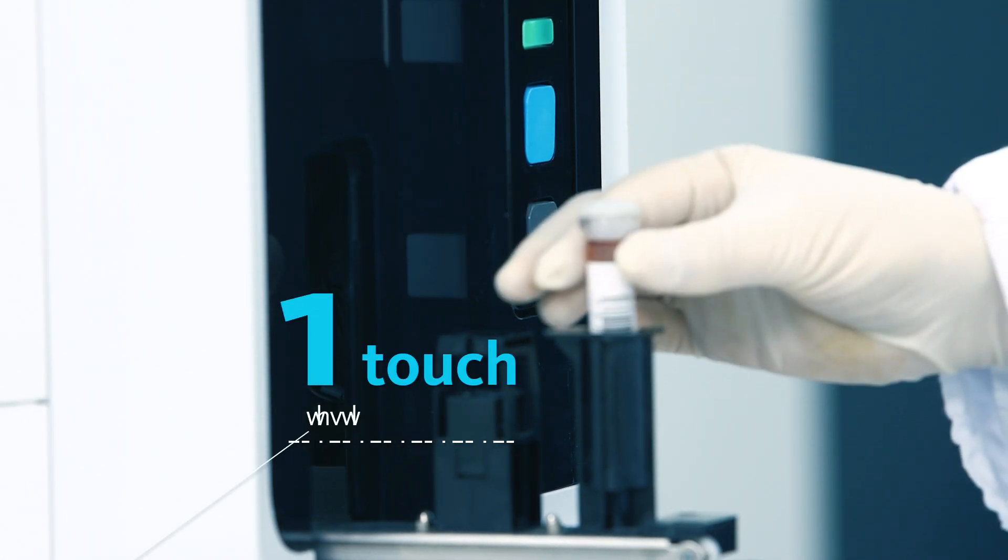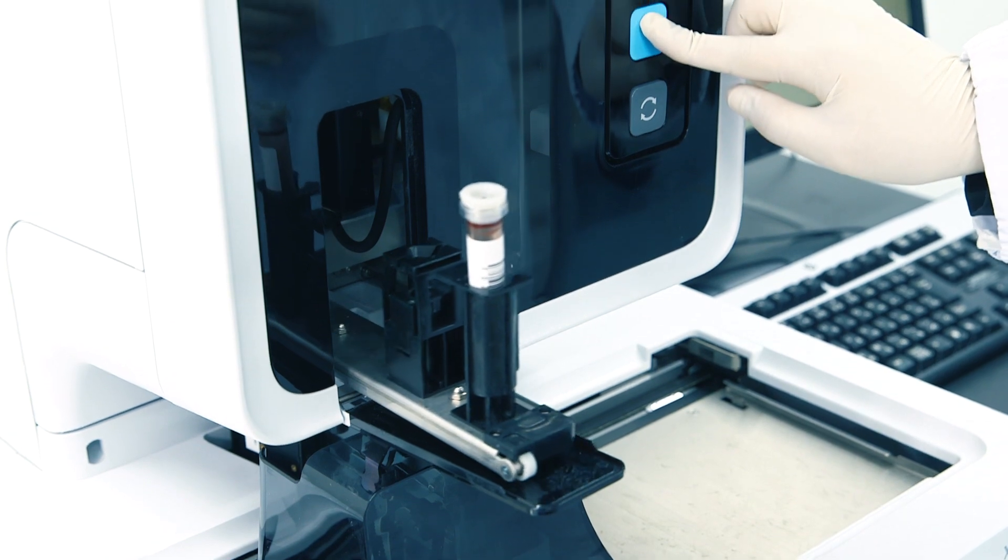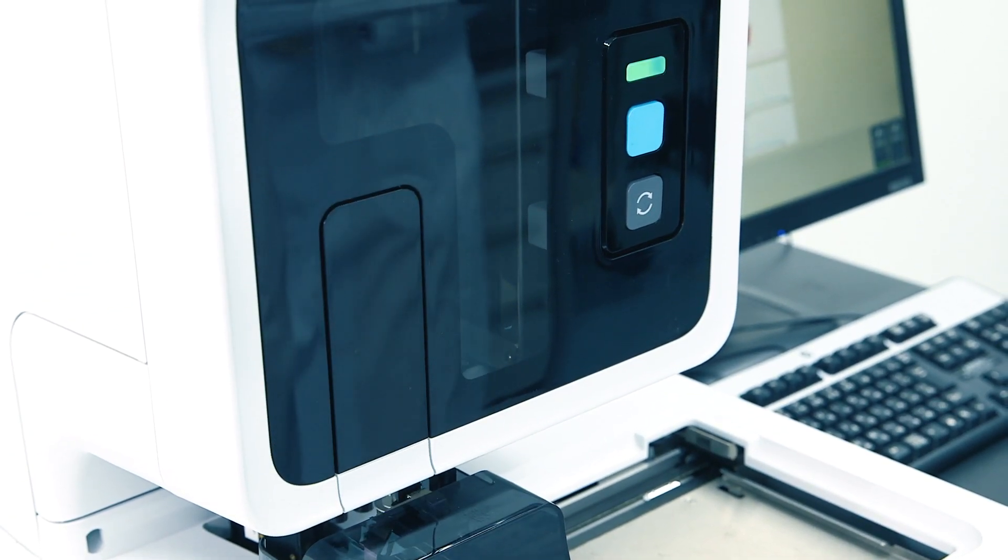One-touch testing. The XN31 can be easily used by any laboratory technician, as it does not require any expertise.